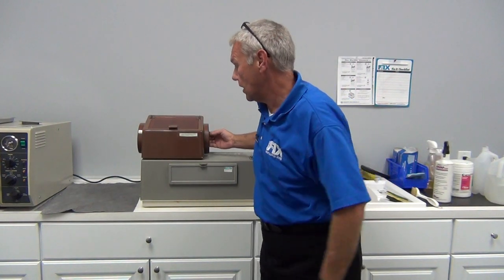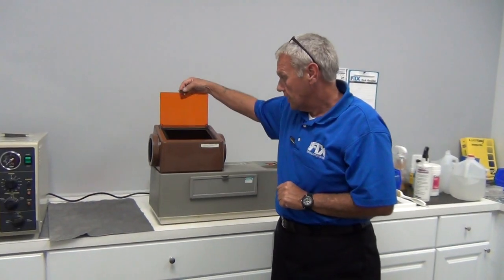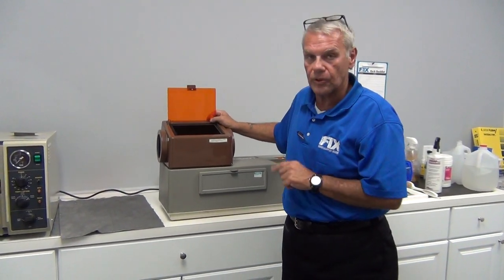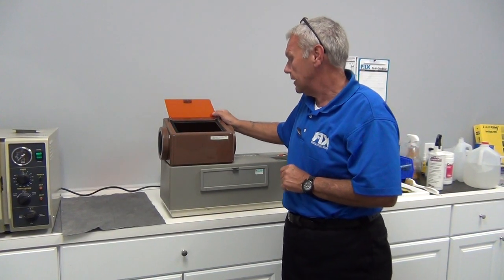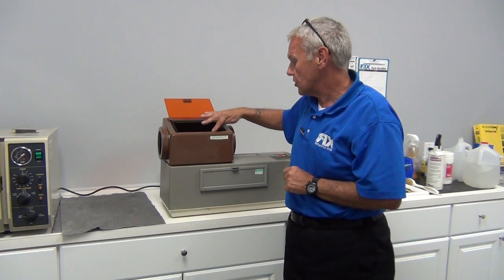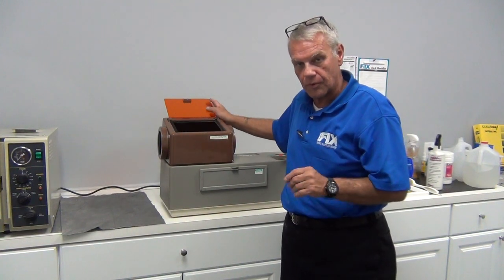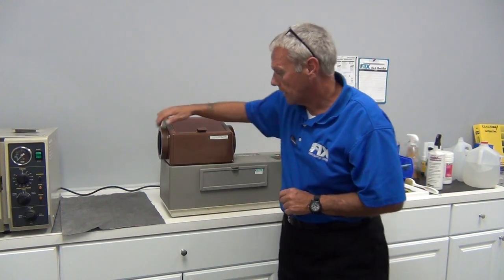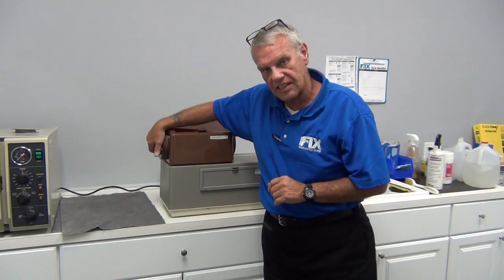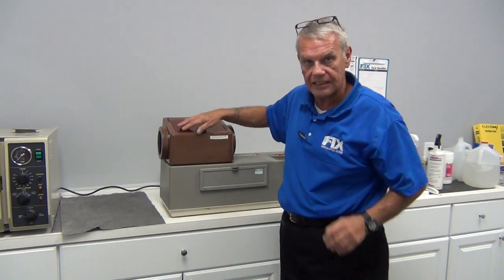The daylight loader consists of a lens and two cuffs for you to slip your hands through, forming a light-tight seal. You'll want to check a couple of items on it. Check your amber or red lens, or filter as it's properly called — you shouldn't have any scratches on it and it should be clean. The felt lining under it, which constitutes a gasket, should be intact and smooth to keep down peripheral light leaks. Inspect your cuffs, left and right, for loss of elasticity.